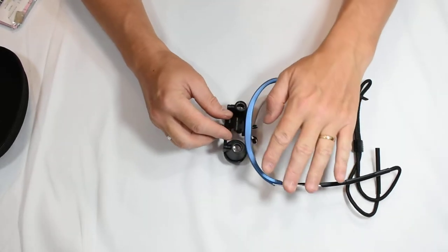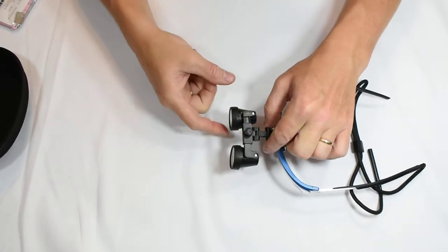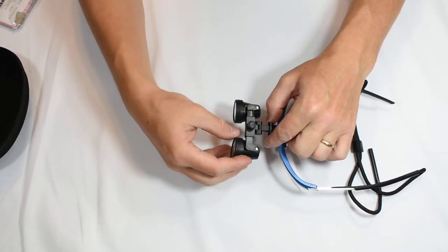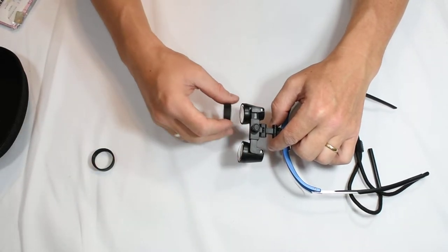Now as we open up the loops here, first thing you notice there are lens covers on here so we'll need to remove those before we start to use them.